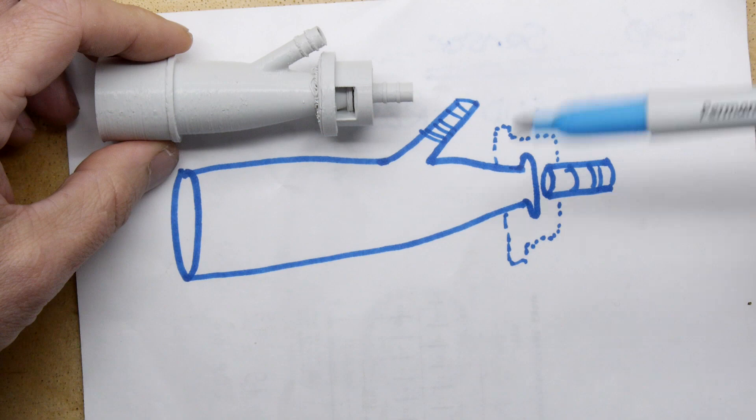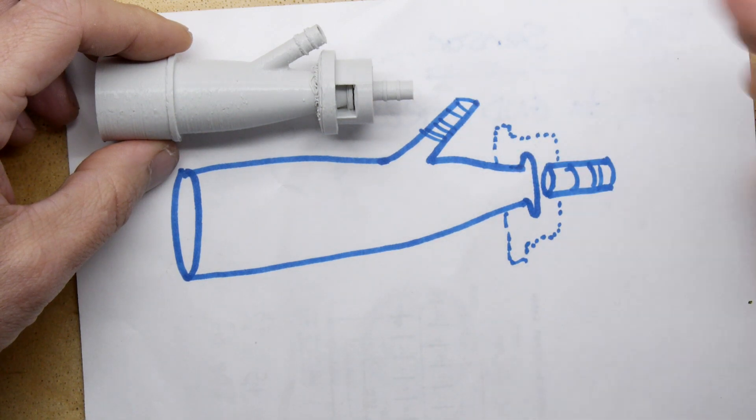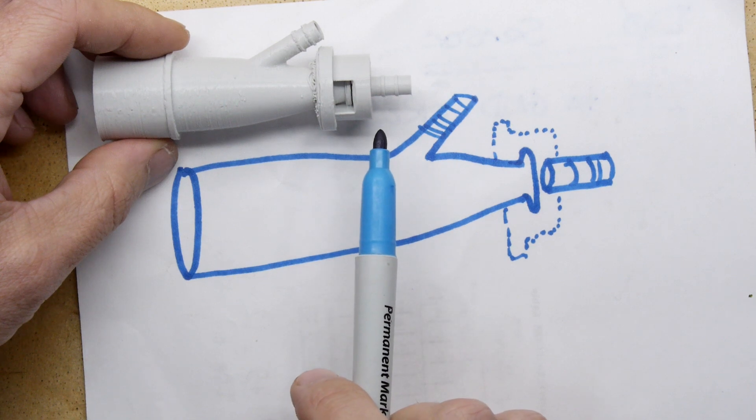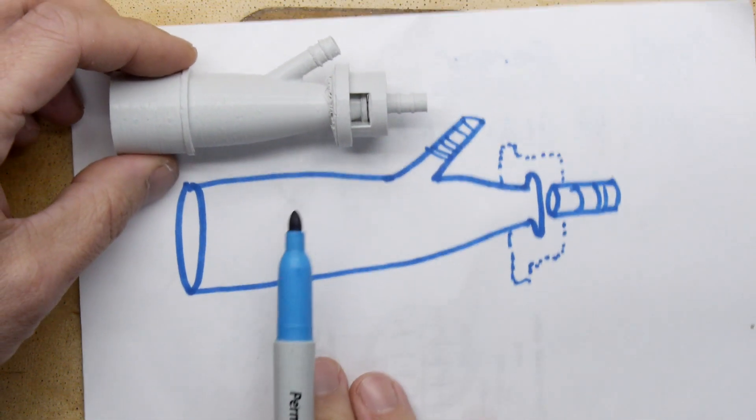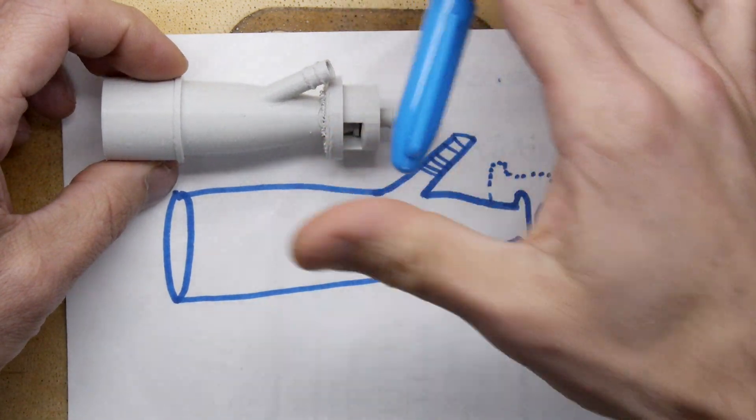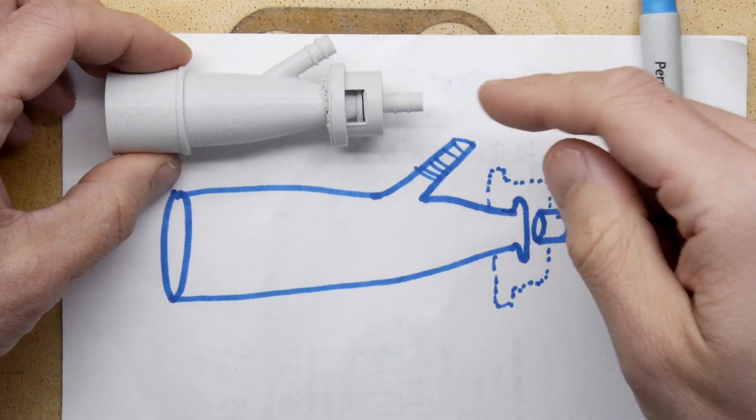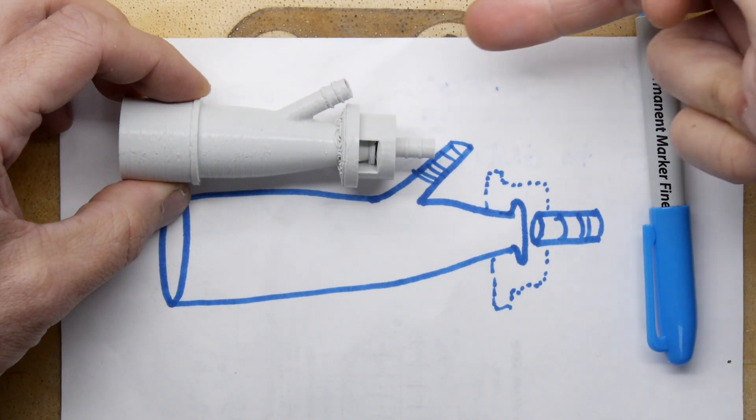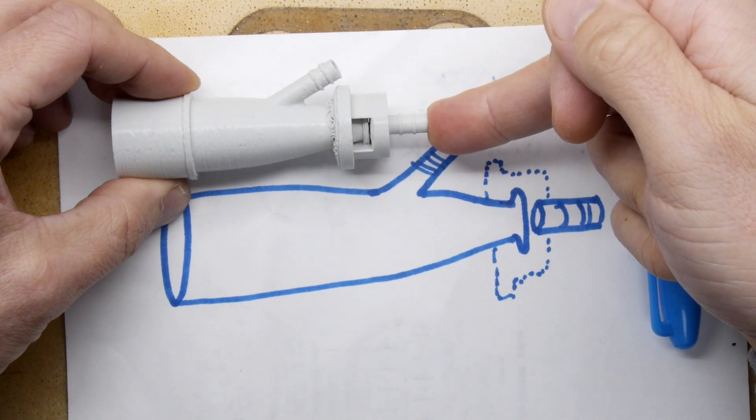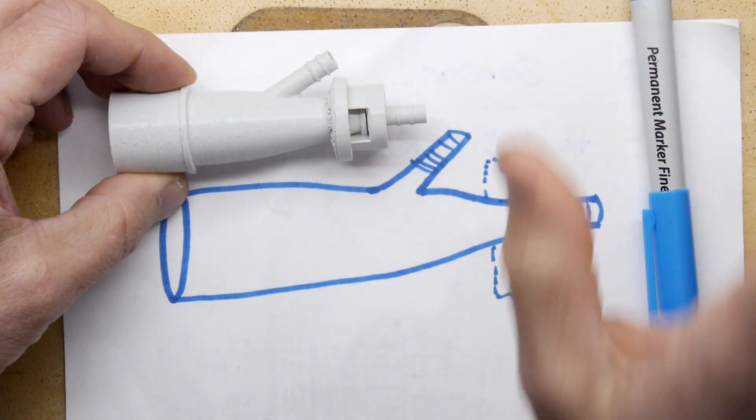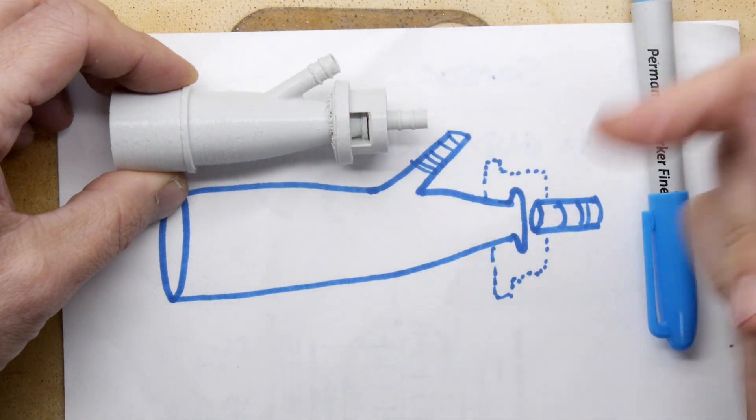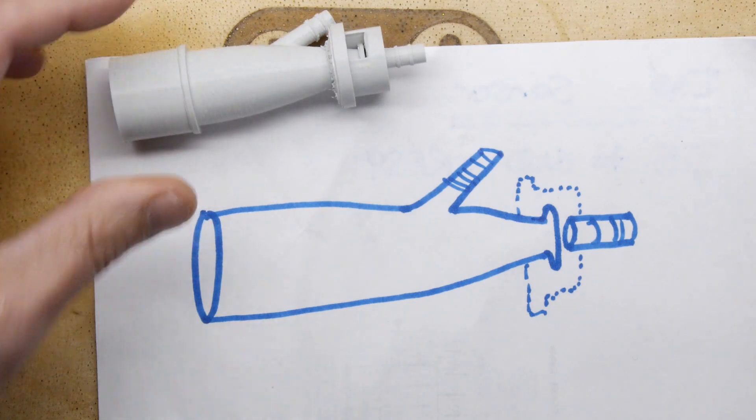I kind of think: how does it work as a valve? Is it a one-way valve or a direction-switching valve? Are you injecting air or oxygen one way into it, and then when you breathe out it's venting to atmosphere? I kind of suspect that could be the case. Or do you just stop the pressure - maybe it's got a feed and it stops and blows.